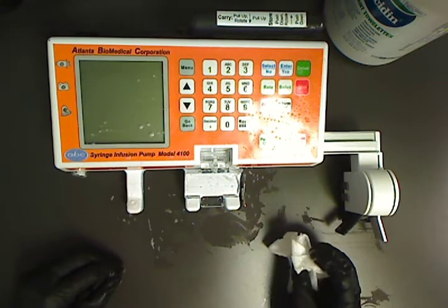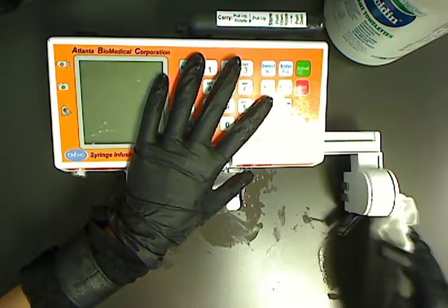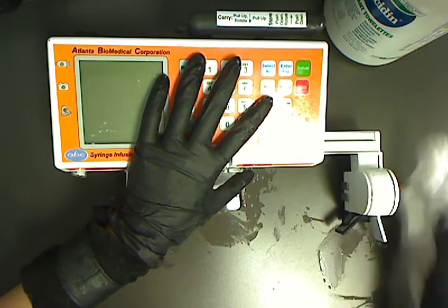Next clean the black clutch lever and the white tab that you squeeze when you load a syringe.